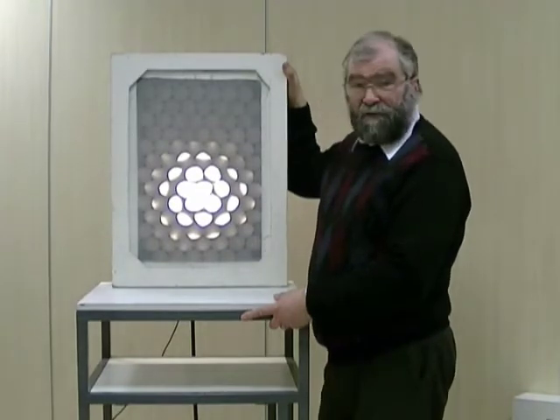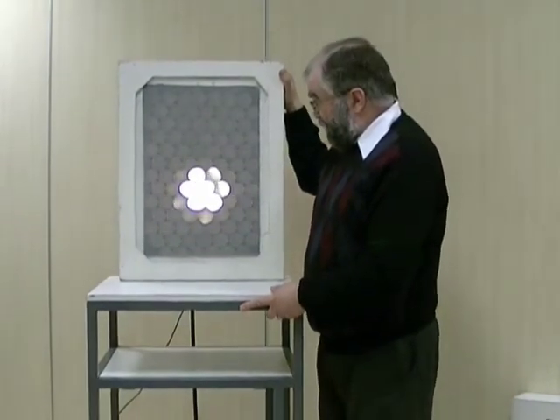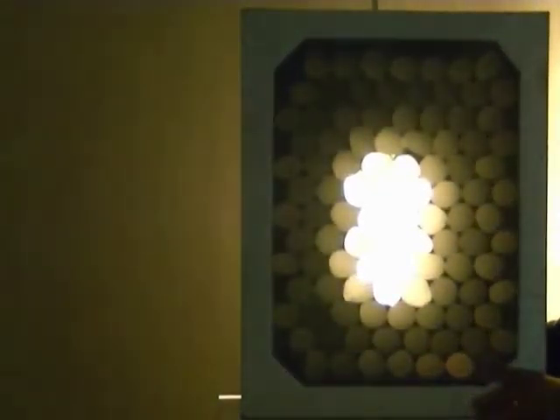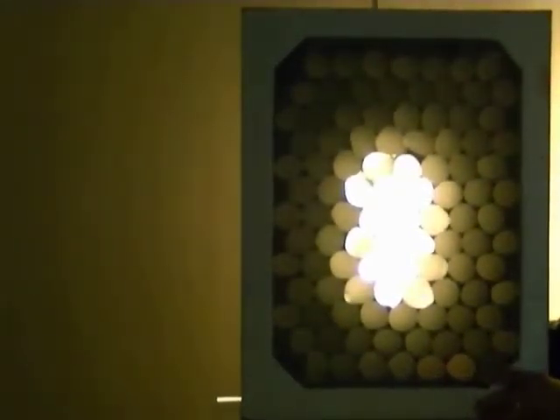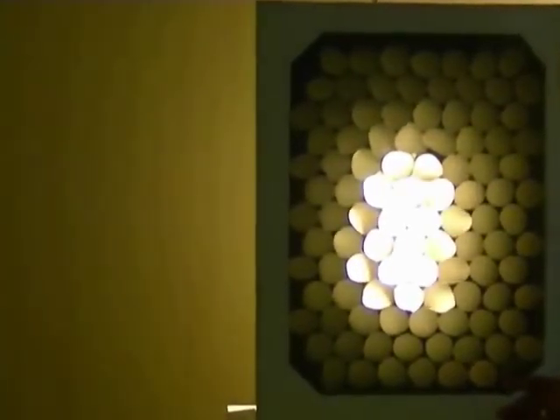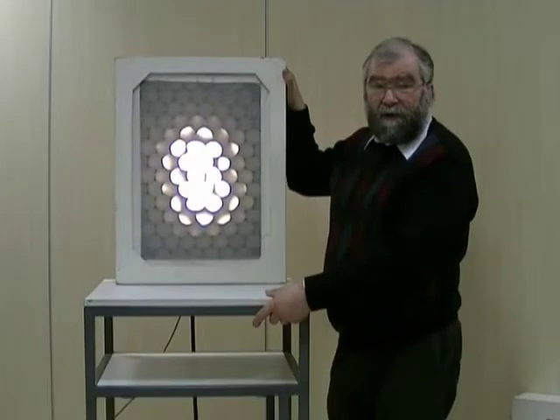The total amount of light received is independent of distance. The sensitivity of this collimator is independent of distance — it's the same whether you're further away or close. But resolution, the blurring of the image and the ability to separate two separate images, is good when you're close and gets worse the further away you get. Those are the properties of a parallel hole collimator.